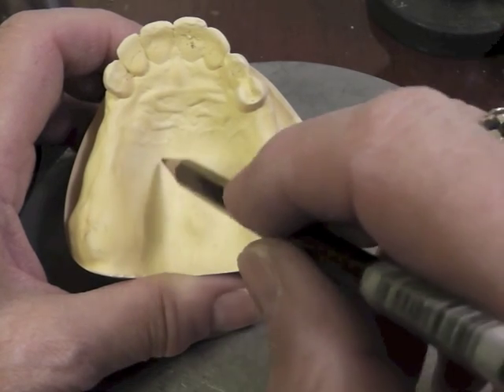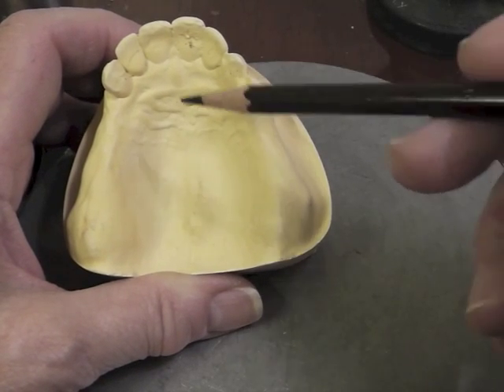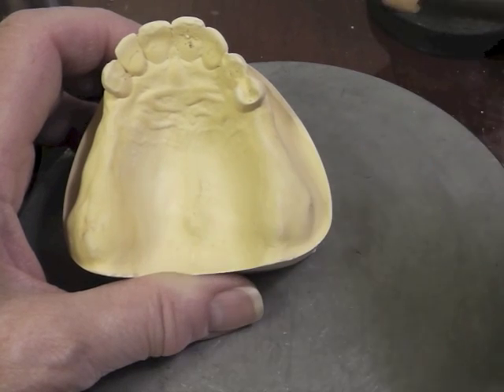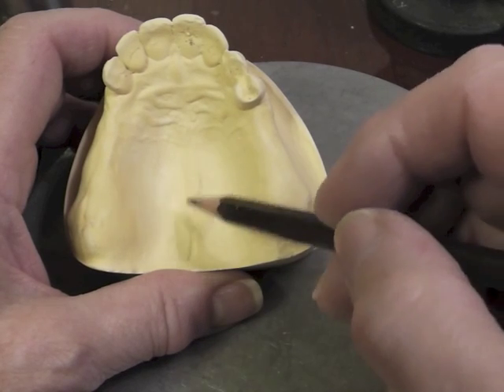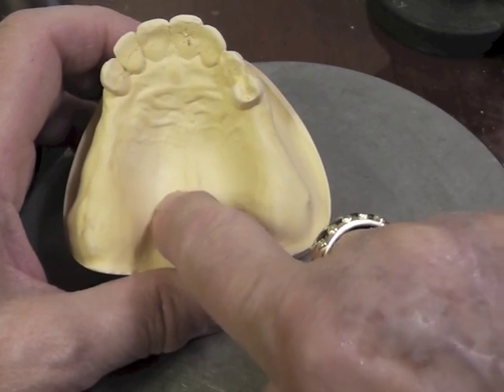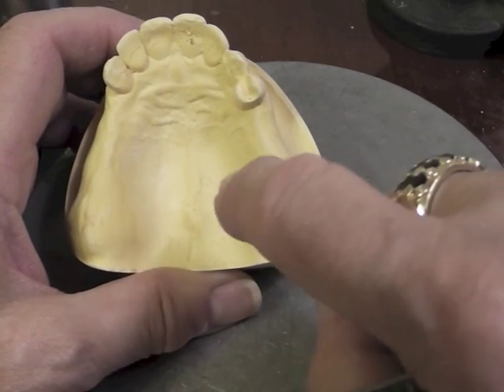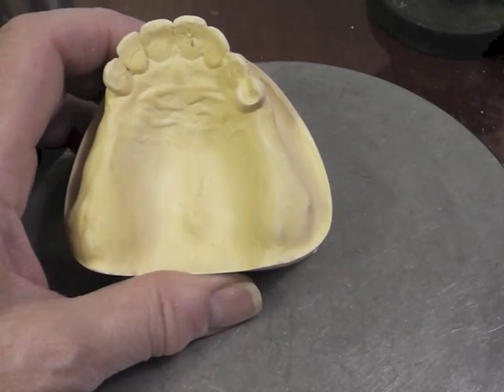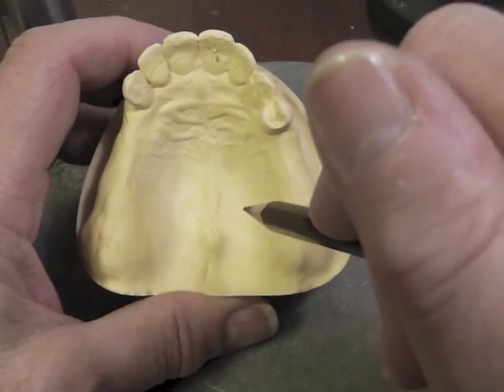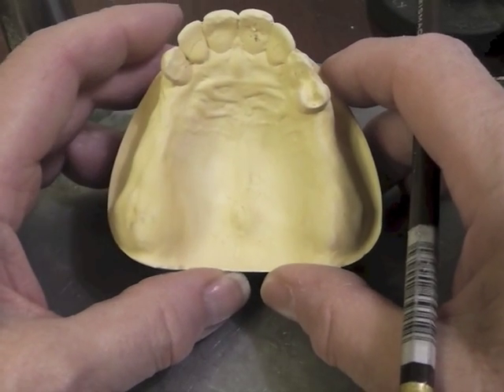Once we do that, there's not much of a chance that we're going to be able to do an anterior-posterior palatal strap, because we cannot take that strap across that torus as the skin is very thin. That metal across that torus with very thin tissues above it would keep it chronically sore. So we will avoid our torus either with a horseshoe or we'll do a large palatal plate covering most of the maxillary palate.